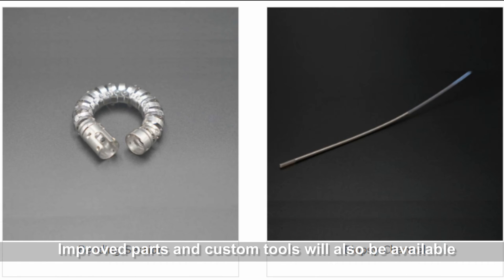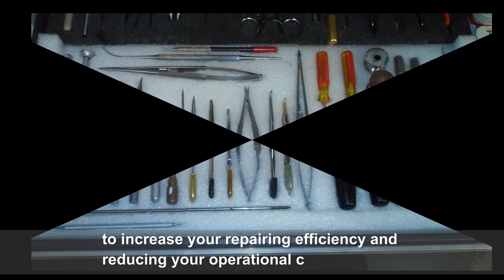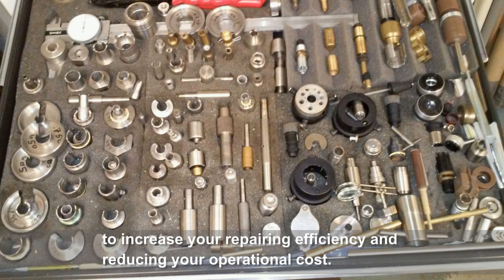Improved parts and custom tools will also be available to increase your repairing efficiency and reduce your operational costs.